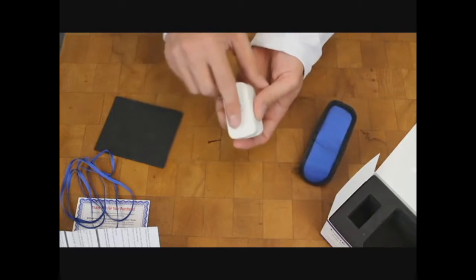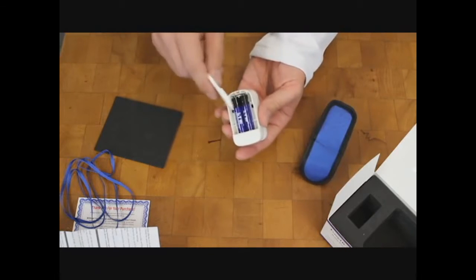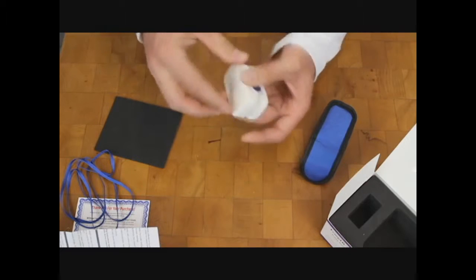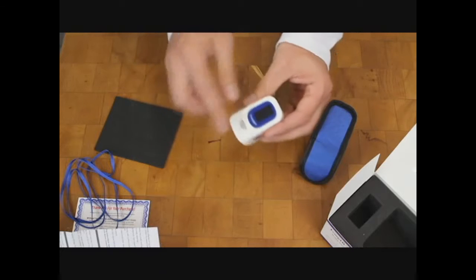You can see on the back side here is where the batteries go in. There are the two AAAs that it did come with. Let me close this back up just like that. Nice and simple.